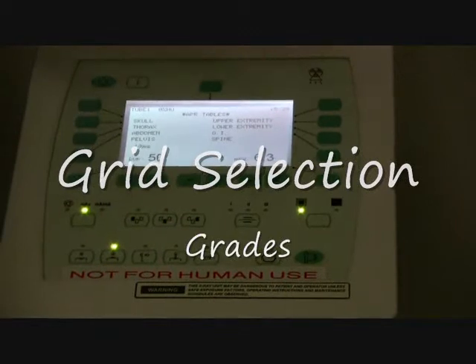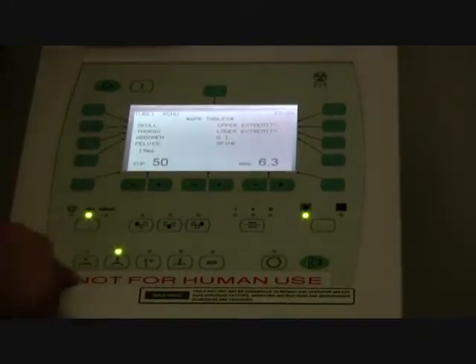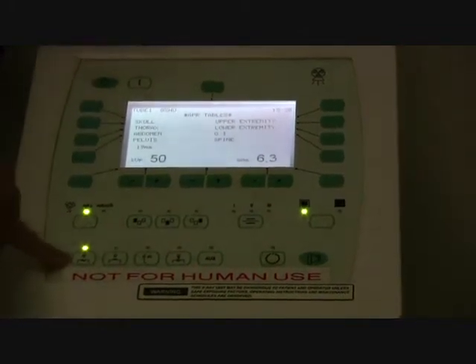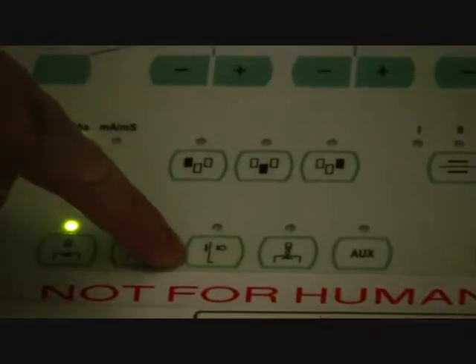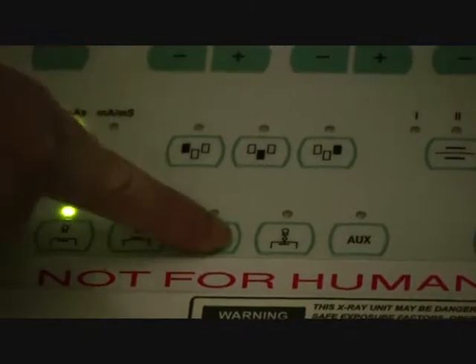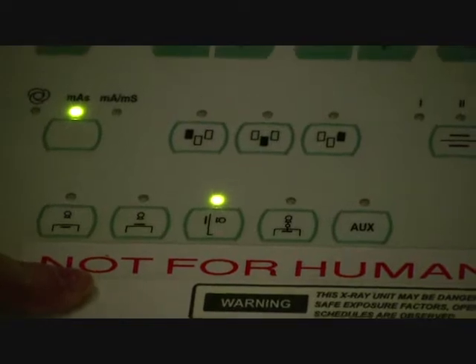So the next thing I want to talk about is the different kinds of grids. If you see this here, this is our tabletop, like when we're doing our digits. But then when we come over here, if we're going to do a hip, which we're going to do in the table bucky, you've got to select that grid, and it shows the cassette being in the table. Now, next semester when we do chest x-rays, we're going to be going to the wall. So right here's your wall grid. You're going to push that button to make sure that grid's selected. Any questions? Very cool.